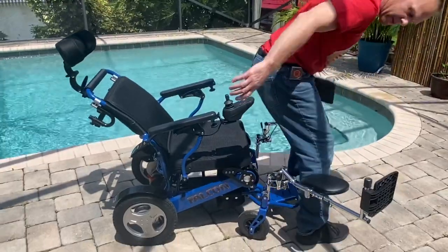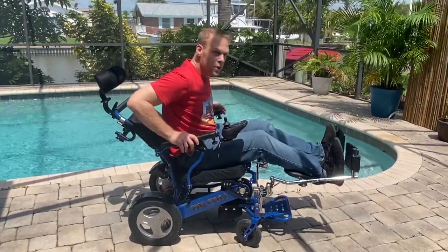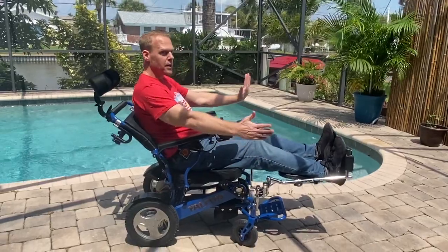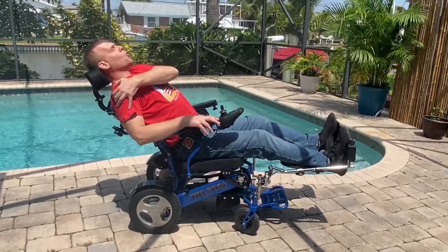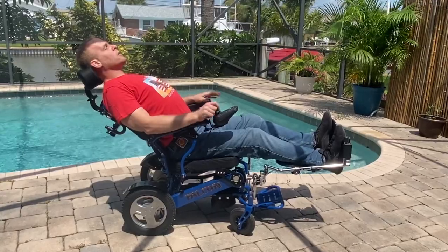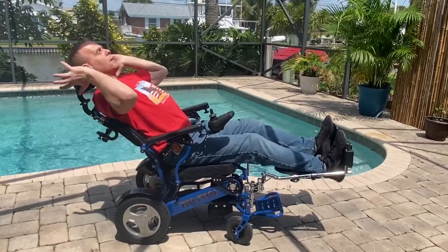Let me sit down in the seat here. The leg extension kit very easily locks my legs fully in front of my body if I need that. I can just recline right here — you can see no strain on my shoulders because the armrests are actually lifted, and you can see the level of comfort operating this chair as a recliner with no problem on my lower back.